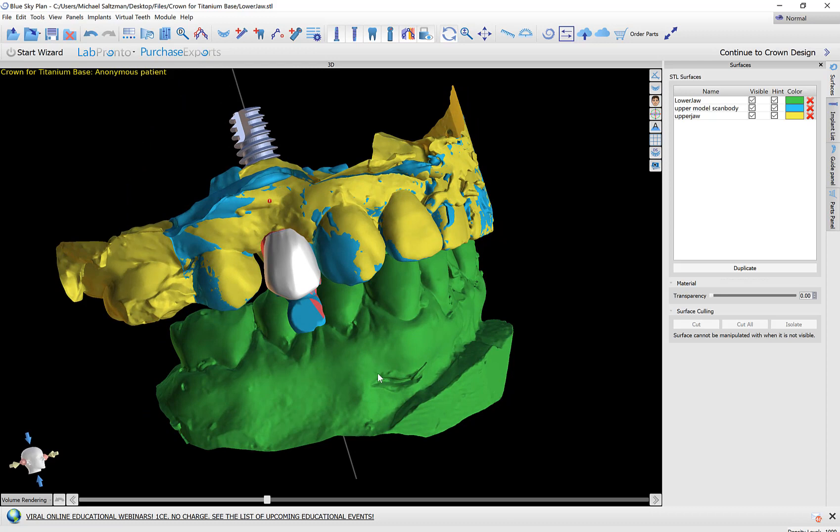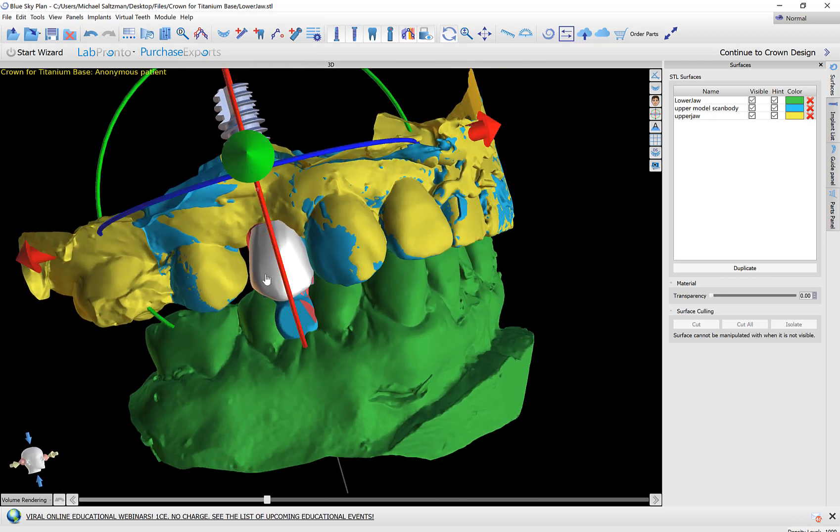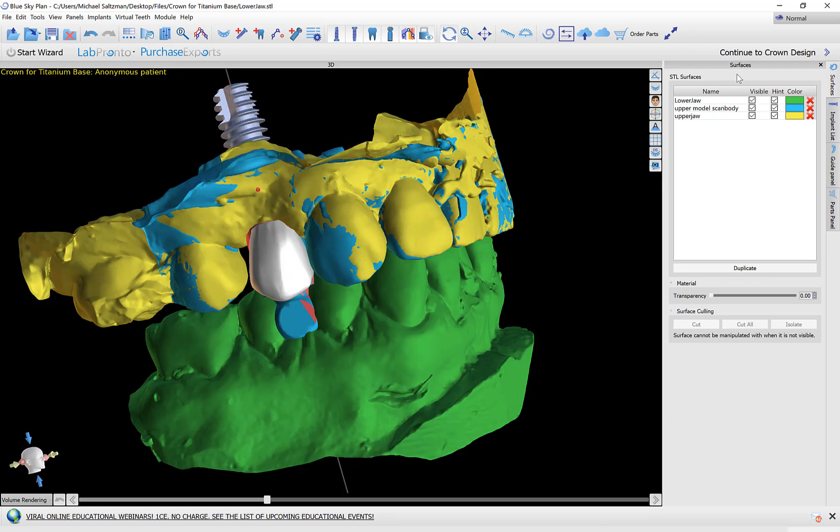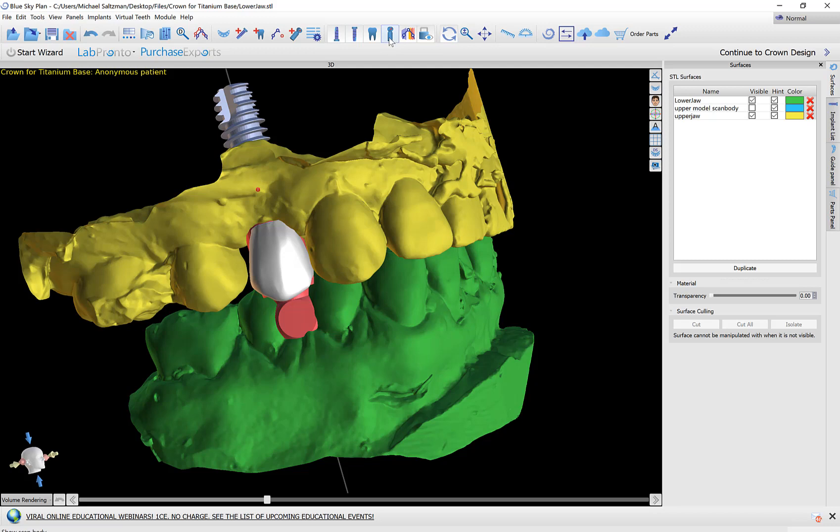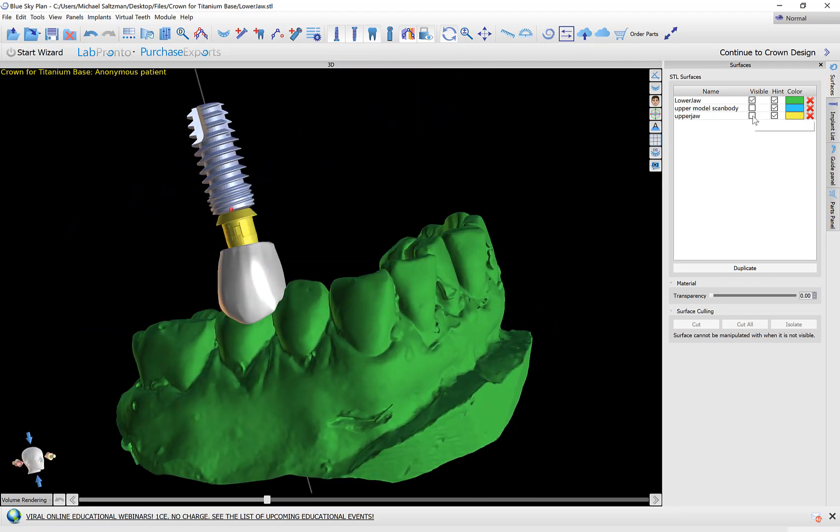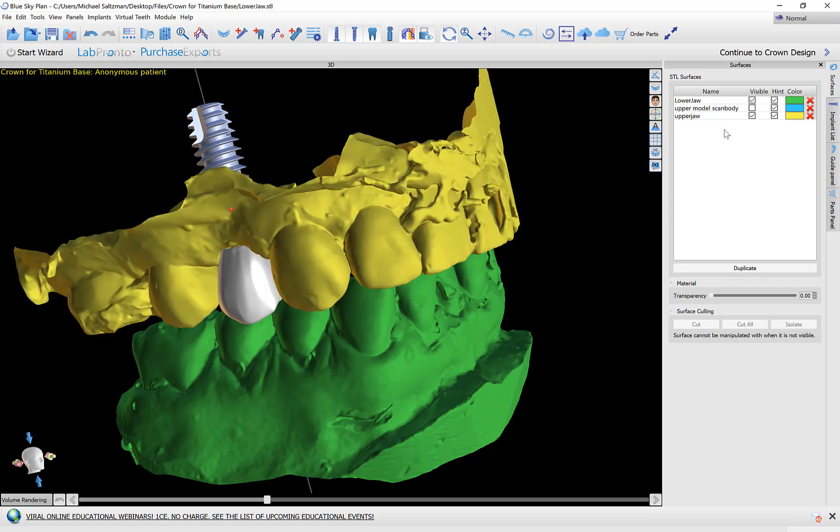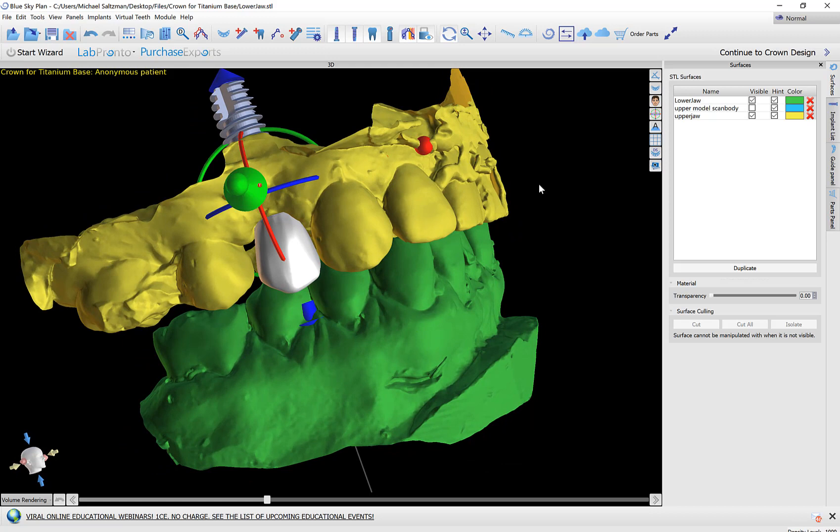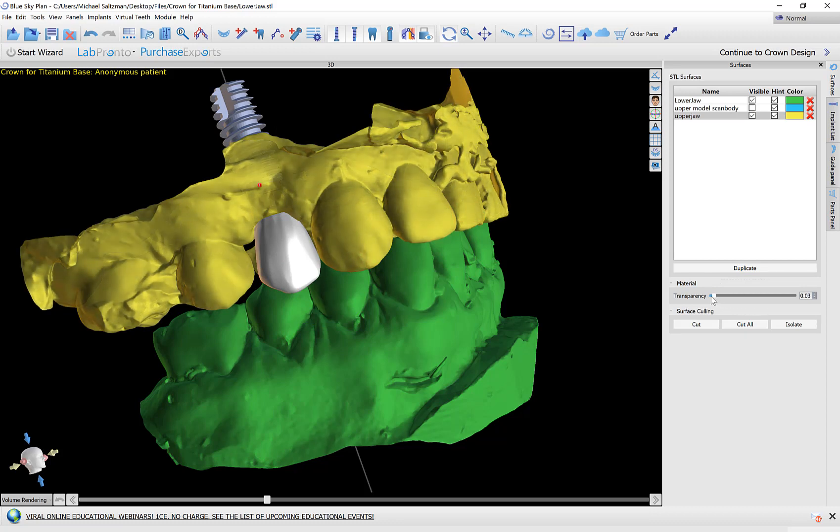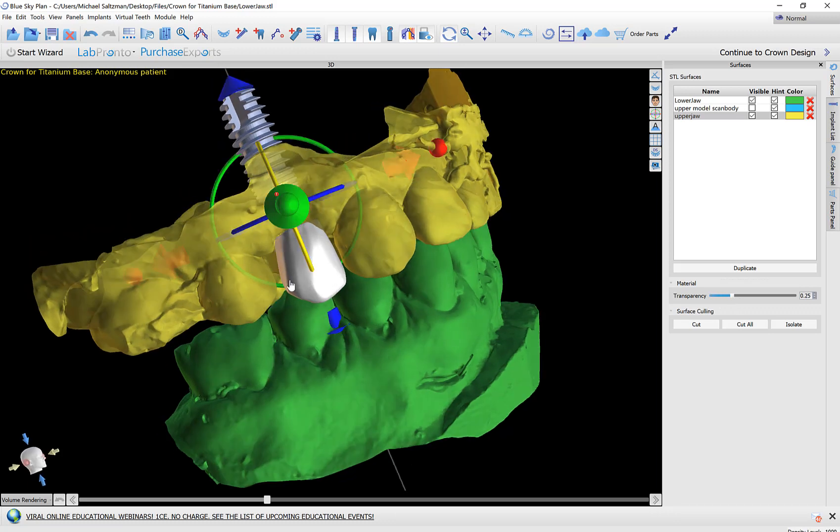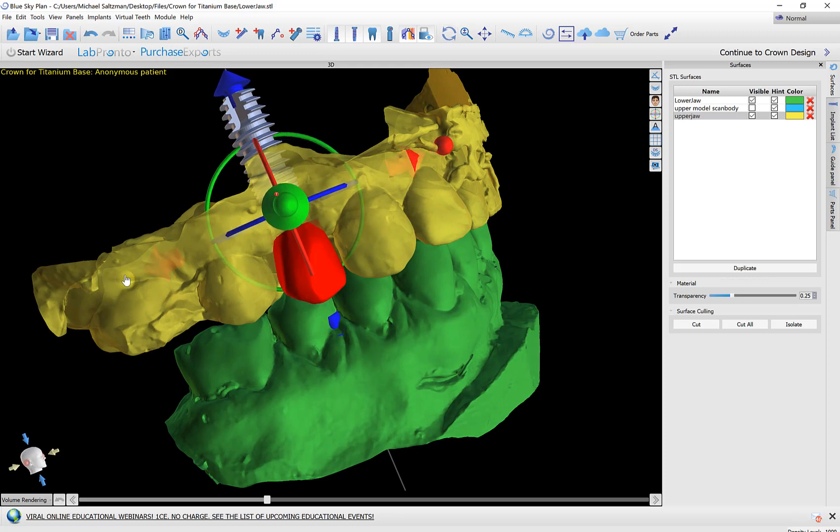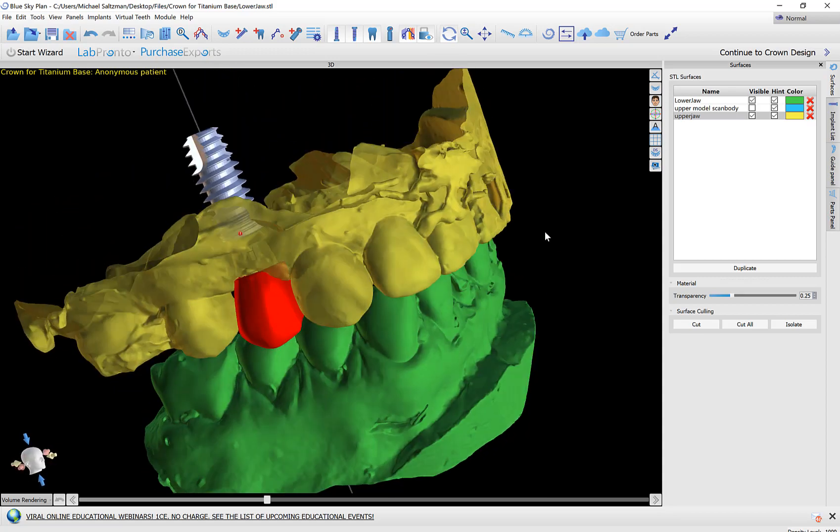And now we can see what happened here is the software aligned an abutment, an initial positioning for the tooth and an implant all to the scan body. We have our surfaces panel on the right hand side so we could hide any surfaces that are not relevant. We could also use our horizontal toolbar to toggle on and off the visibility of the scan body. And we could hide the model for a second and see how we now have an implant abutment and virtual tooth aligned to our case. Any model could be clicked on and the transparency slider could be used to make it transparent.